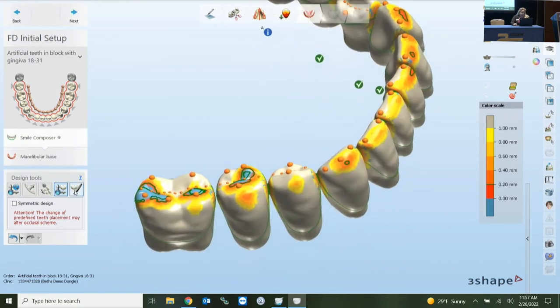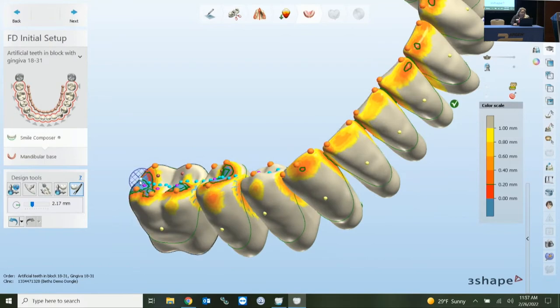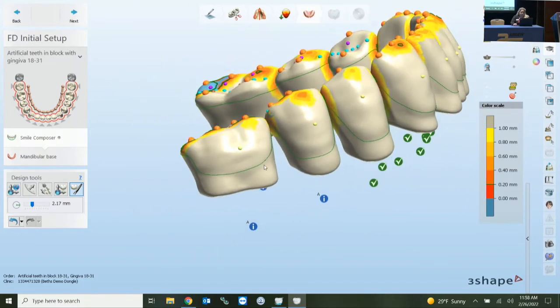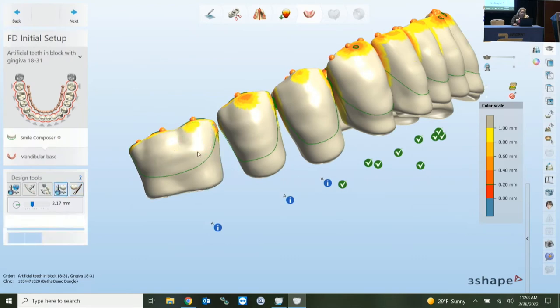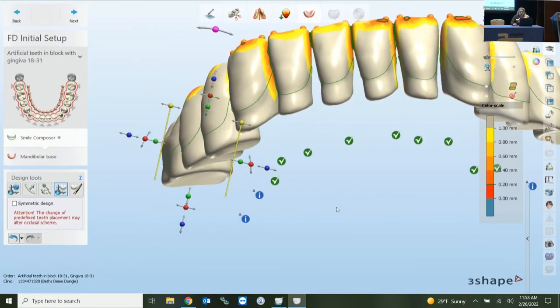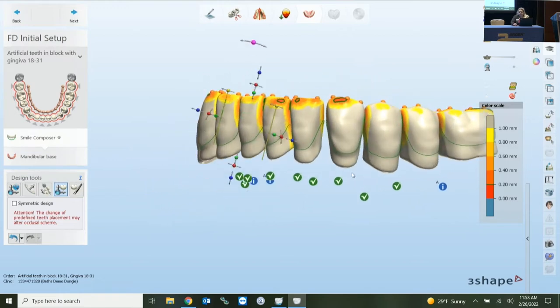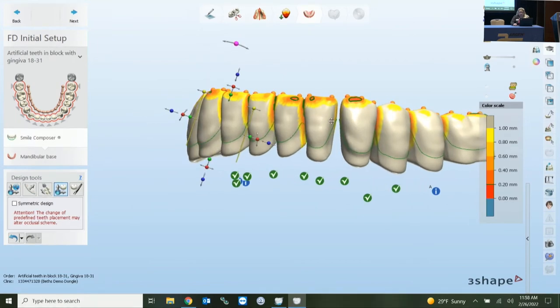With the morphing tool on the left you can do individual adjustments — grab the dots or just click and drag the area to adjust as needed. You also have the option to bring in contact with antagonists, but it only finds the first point of contact, so you're still responsible for developing your occlusal scheme correctly. Gaps are okay — when you get into the connectors, it will connect everything based on the way your case is set up.